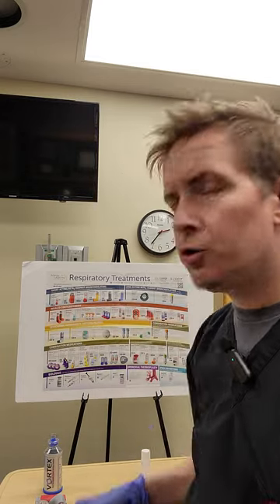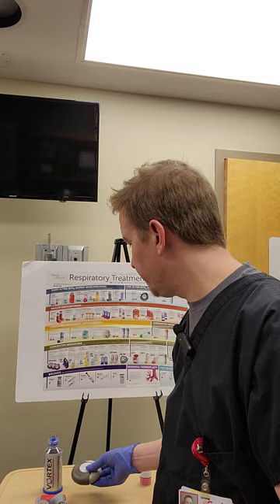Next is the Diskus modality. This usually houses Advair, which is a combination med — we'll cover that in a second. It's a dry powder inhaler. To open it, slide it open and it will crunch a little tablet inside — hear that click. Now it's ready for the patient: go ahead and take a breath and hold it. The rule of thumb on any metered dose or dry powder inhaler is to take a breath and hold it as long as you can — that inspiratory hold is huge. After all inhalers, have your patient wash and spit. It's mainly for inhaled steroids where it can cause sores, but I just tell everyone to do a nice swish after every inhaled med. That's the Diskus.